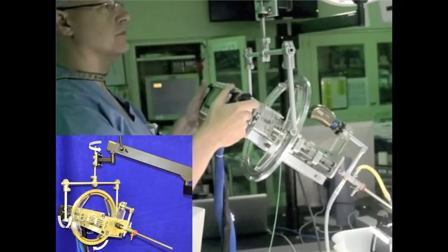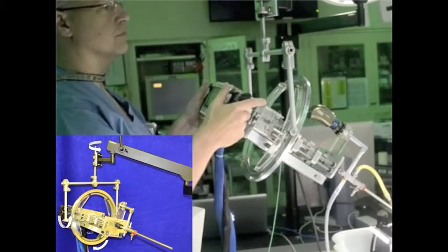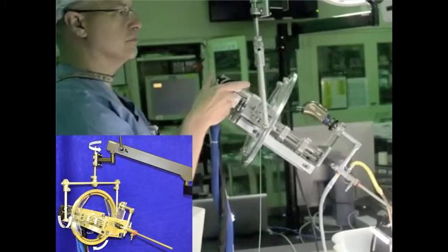Additionally, because this robot is handheld, we have designed a spring-loaded counterbalancing frame to take the weight of the robot off of the surgeon's hands.